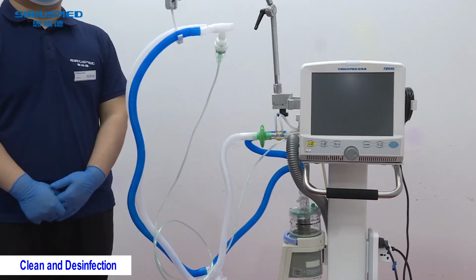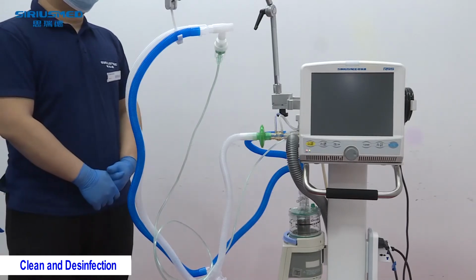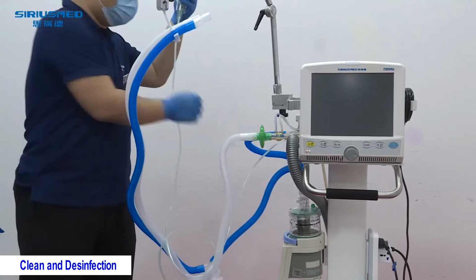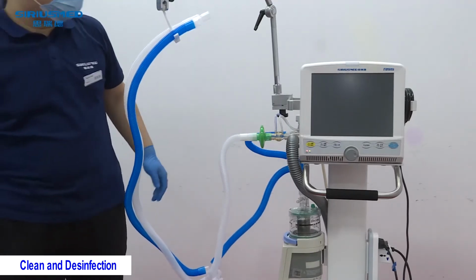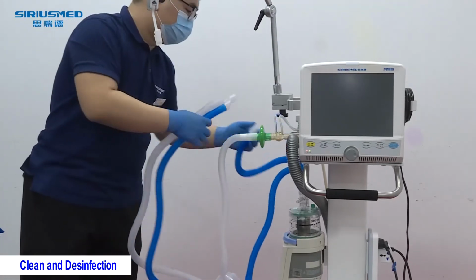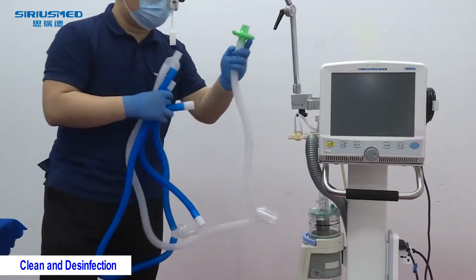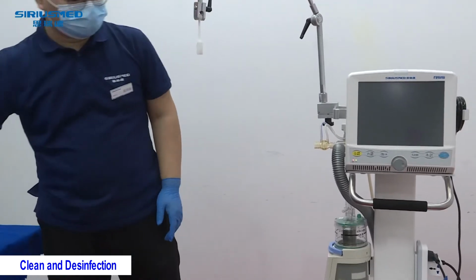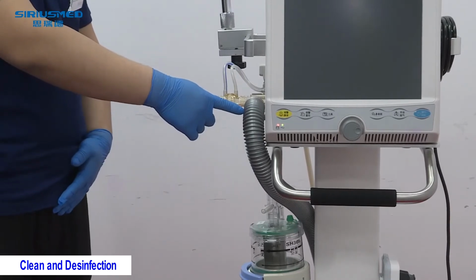The cleaning and disinfection of the ventilator. During daily use, we need to change the disposable tubes as we use them for different patients. The nebulizer tubes, the patient circuits, as well as the bacteria filter. These three things are totally disposable. They cannot be used for different patients.